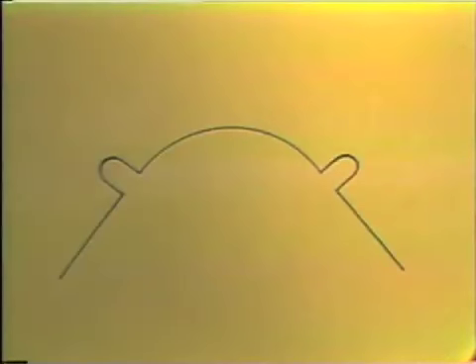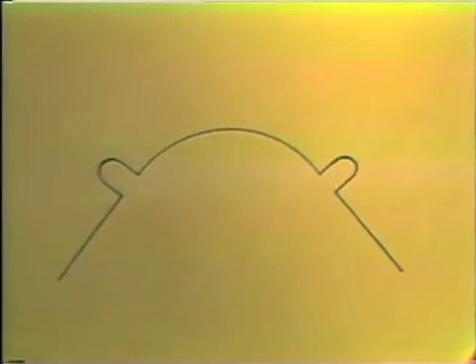The second exercise pattern incorporates all four types of bends in the wire: the right angle bend, curves, loops, and control of plane in space, or flatness. This pattern simulates the bends that are needed to make a Hawley labial wire.